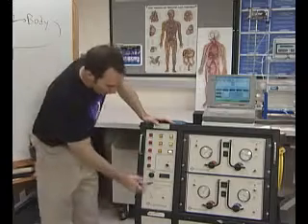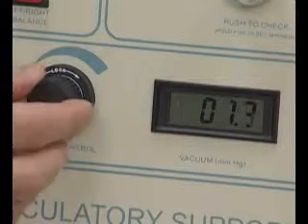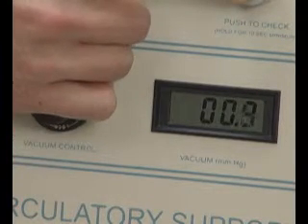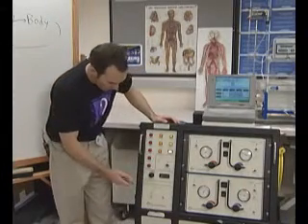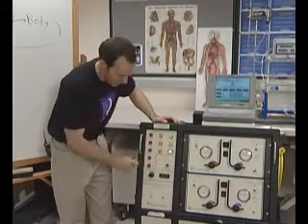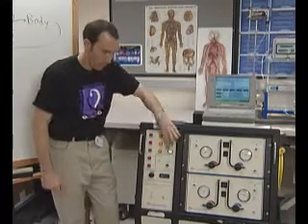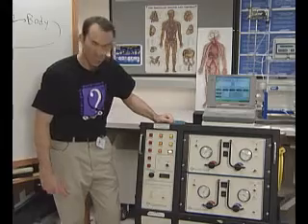Also on this part of the console you'll see the vacuum — as mentioned, there is a vacuum pulling air pressure back and putting the device in diastole. We're also able to do battery checks to make sure the batteries are functioning properly, and there is an alarm mute here to mute any active alarms.